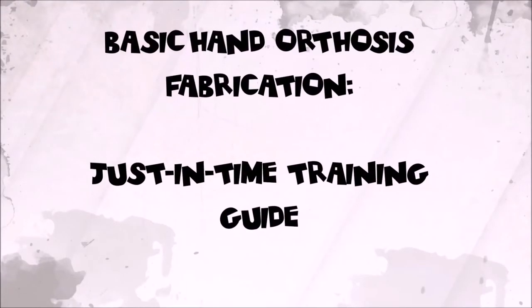Welcome to Basic Hand Orthosis Fabrication, a just-in-time training guide. This is a refresher training that will help you fabricate a resting hand splint.